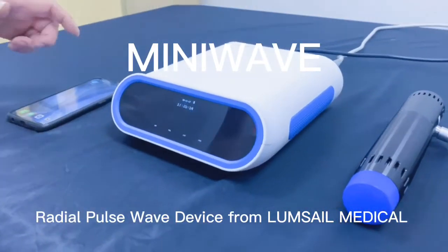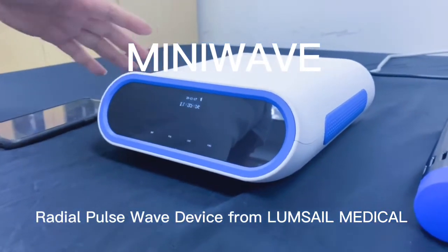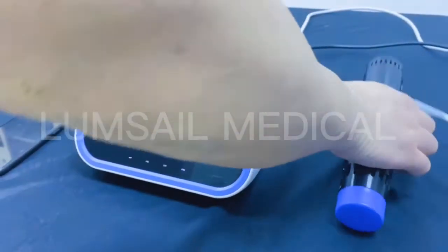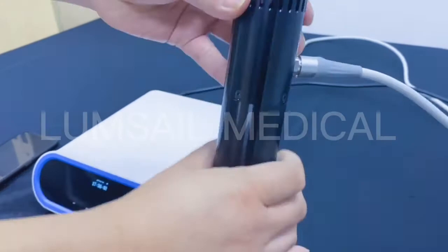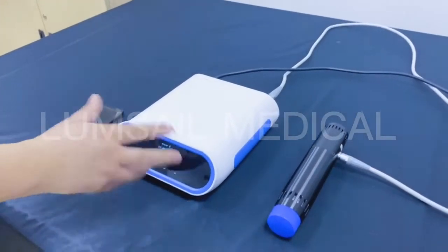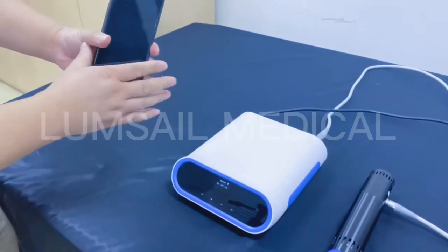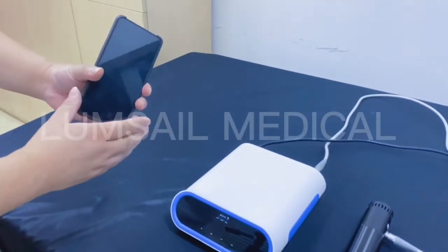Thanks for choosing the Mini-Wave therapy system. This system consists of one main unit and one handpiece. On the handpiece it has a control panel — you can control the machine directly, or you can use the touch control panel to control the machine. We also provide an app on the phone; you can use the phone app to control the unit as well.